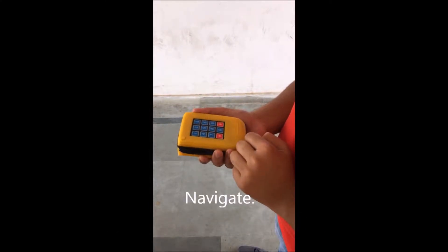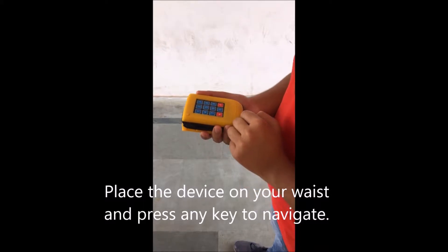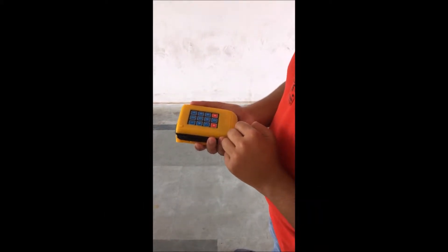Navigate: Place the device on your waist and press any key to navigate.